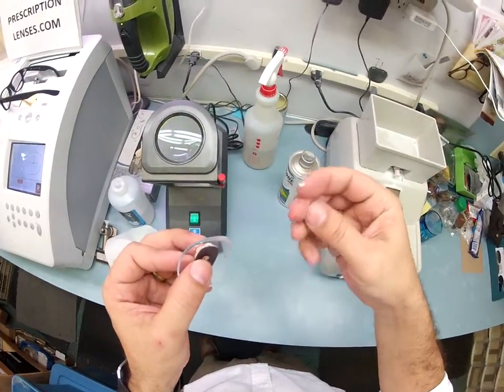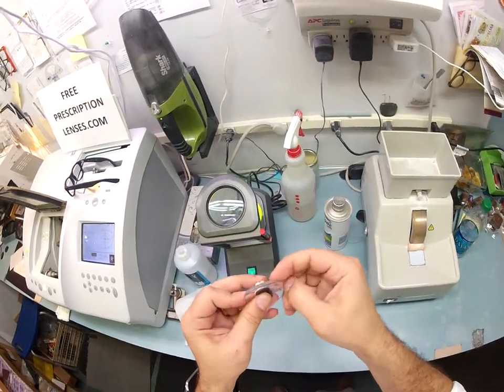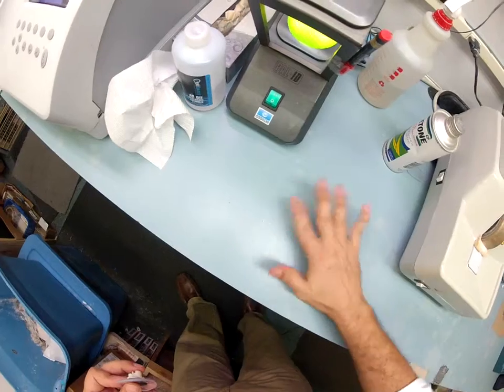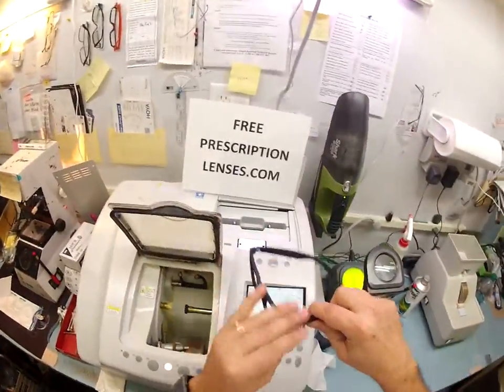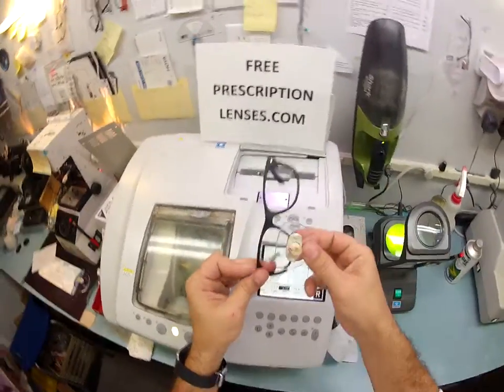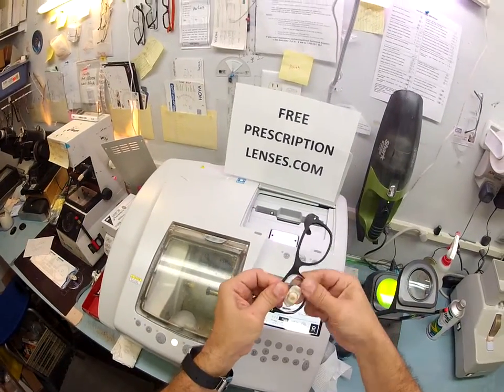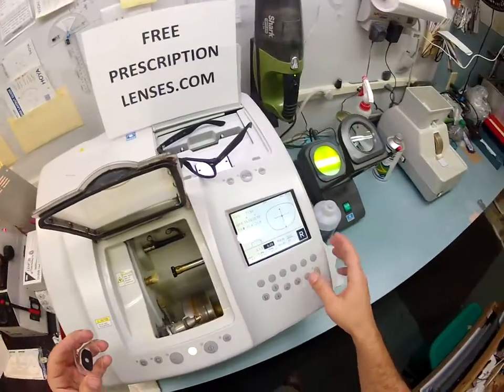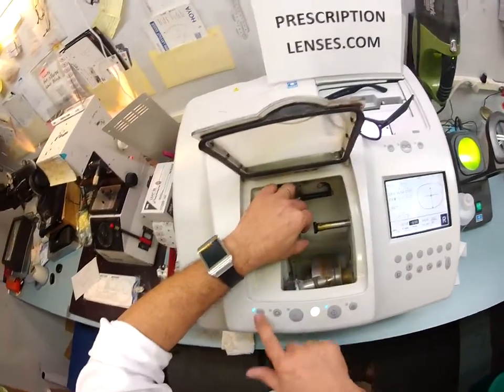Mitch, have you ever seen a white powdery substance being in law enforcement? Well, this is a little bit different. I'll be shocked if this fits, but I'm going to tuck it in at the outside corner and try to push it down — it does not. I know from experience the bevel of the 55 is much deeper than the 52 that I wear. So I'm going to take it down about a quarter of a millimeter and hit the retouch button. I always have to take the 55s down more than I do for the 52s.